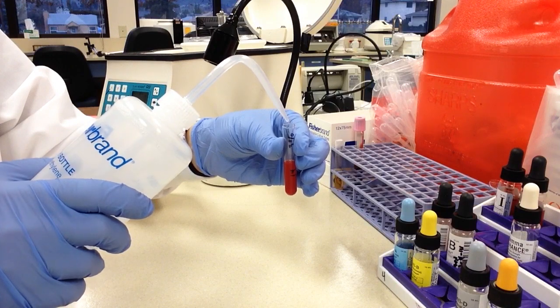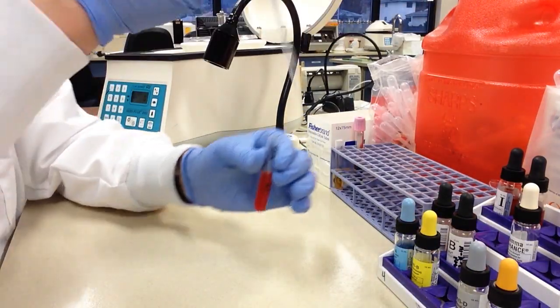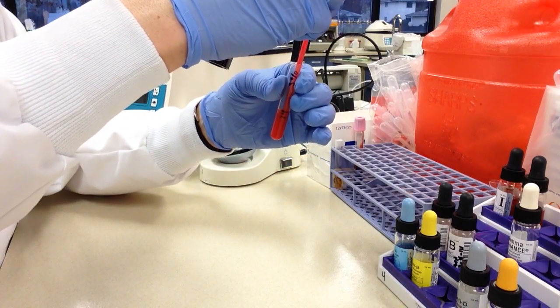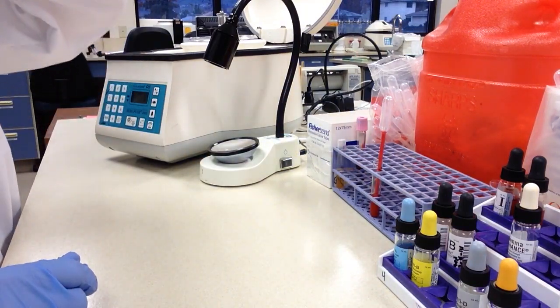Okay, so I can see, let's see, we're going to go a little bit more here. And then what we're going to do is we're going to take a disposable pipette. We're going to up and down a little bit, get it good and mixed up. Now, how do we determine if we have a 3% suspension?